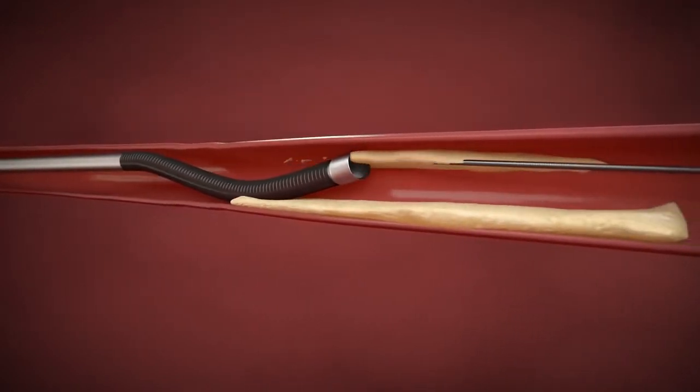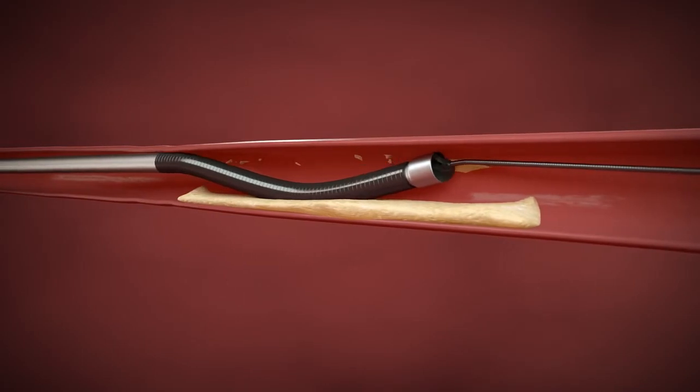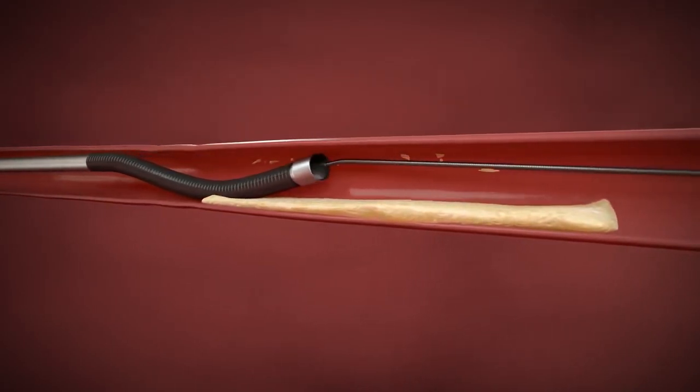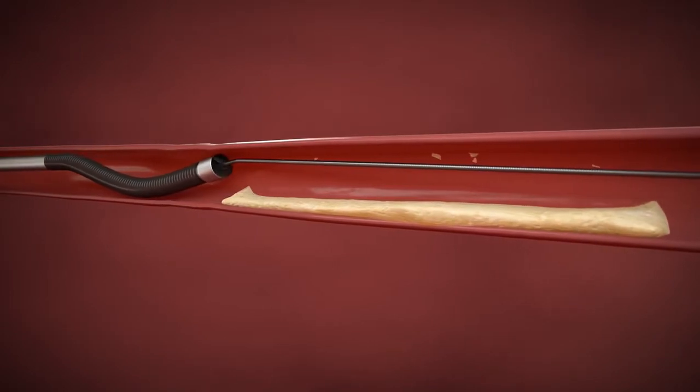The 2.4 mm Phoenix combines all of the key design features of the smaller diameter catheters with the addition of an outer sleeve that facilitates the deflecting of the catheter tip.